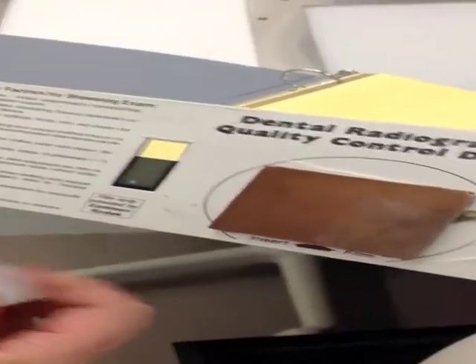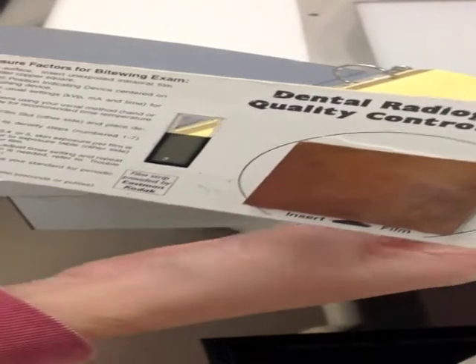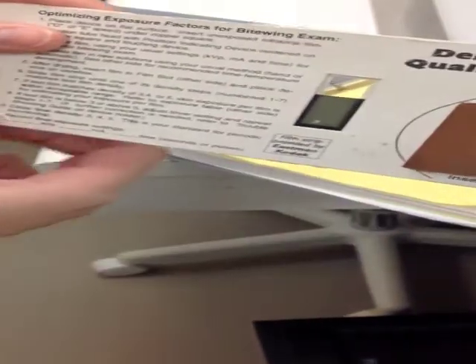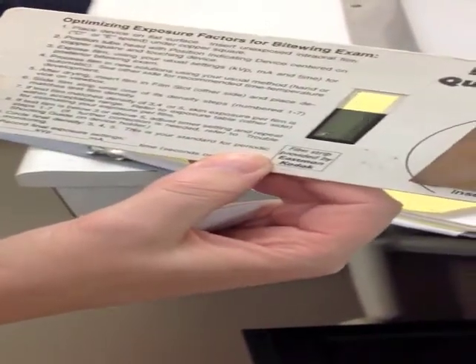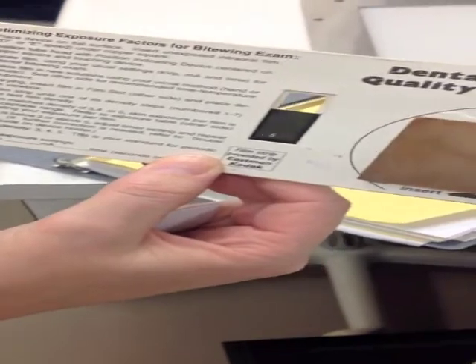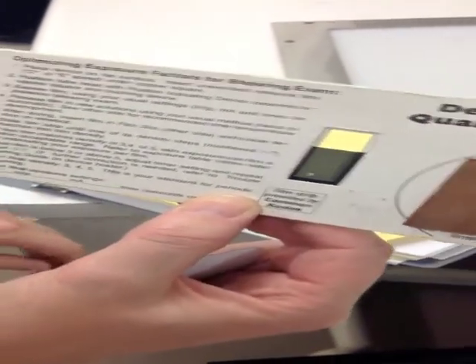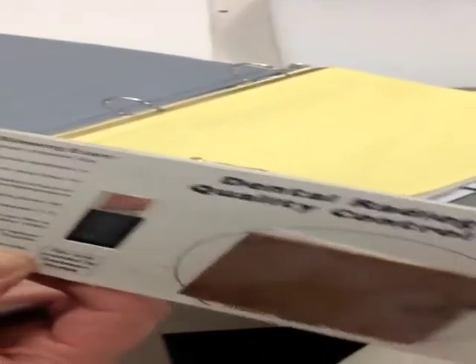Once the film is exposed, you're going to take the film and you're going to place it behind the darkened film in the holder. There are little numbers on the darkened film. 3, 4, and 5 are the acceptable levels of exposure here at IPFW. Once you have the correct exposure, and we know that the units are calibrated, you will then come over and write the date, the density on the film, and whether it matches and it's acceptable in all units, including the 5th unit over in Clinic B.